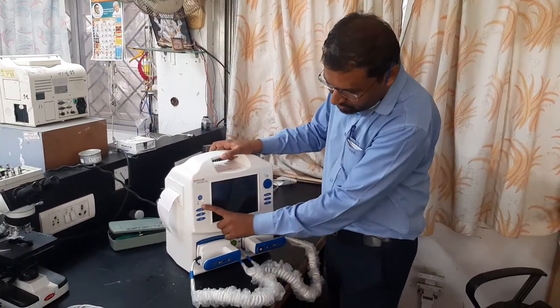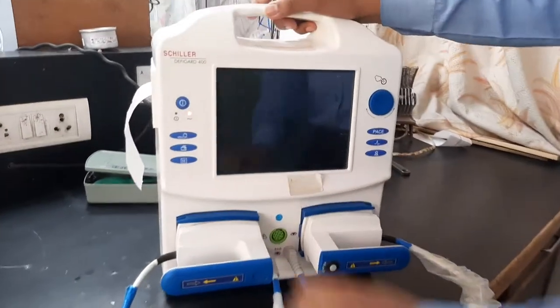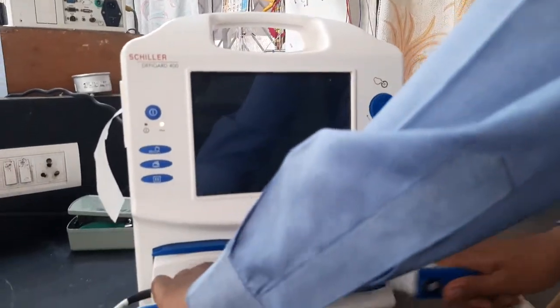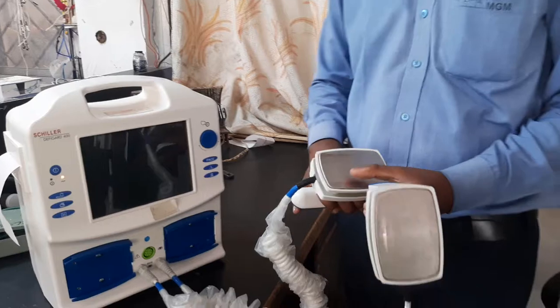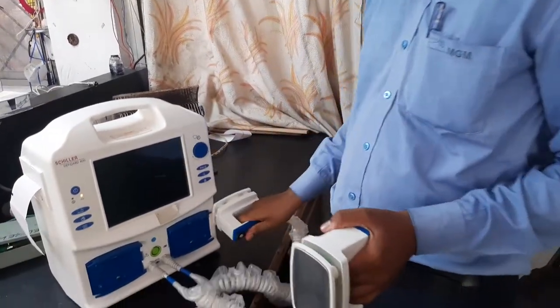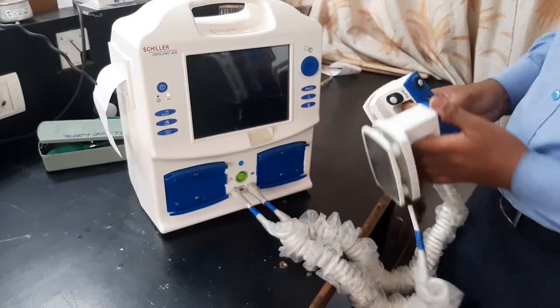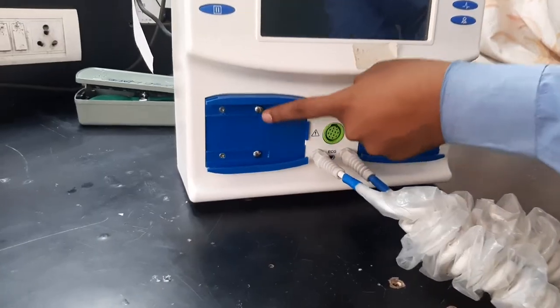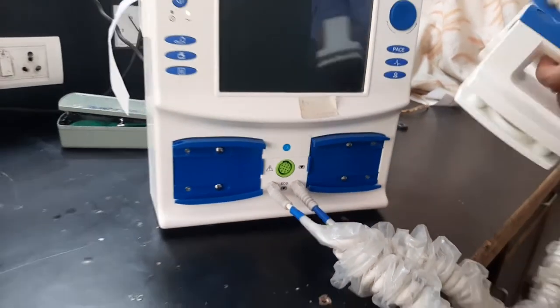When connected to power supply, it will give you a charging indicator. These are the control parameters. This is your shock delivery pad — it should always be kept clean. Before application to the patient, you should apply jelly to the patient. You can observe these small terminals — this is the discharging terminal to check whether the defibrillator is working or not.